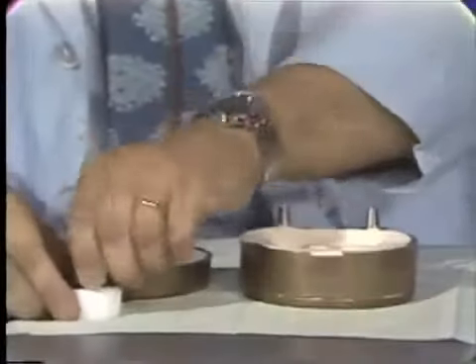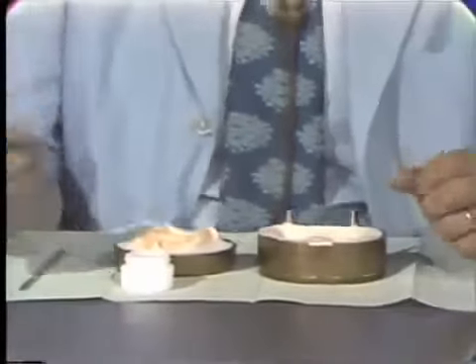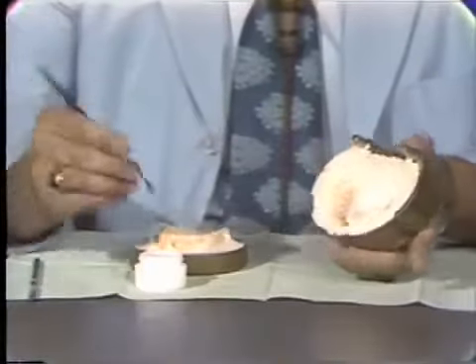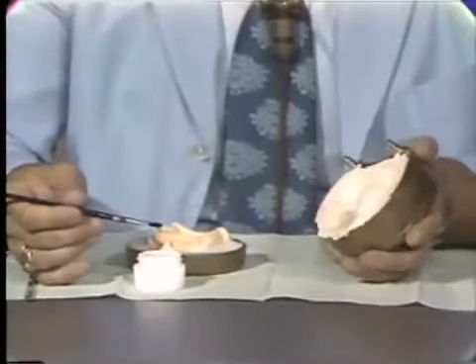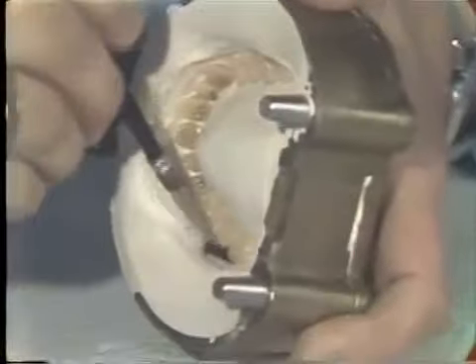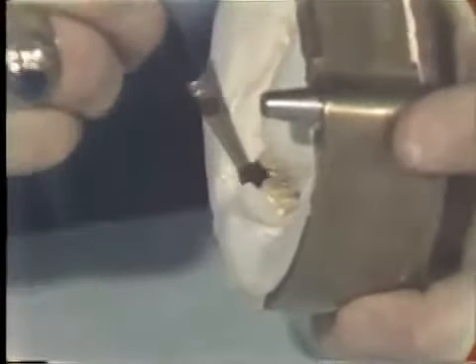We will proceed with placing a separating media over the stone surfaces of our flask mold. To do this, we'll be using a product called Alcote — A-L-C-O-T-E. It is an alginate material that is painted over the surfaces of the stone so that the resin will not adhere to the stone after it is processed. I'm going to proceed only with the maxillary denture at this time, and I'll show you what this looks like as we paint the material onto our stone. You try to not touch the teeth while painting this on, but merely flow the separating media around the teeth on the buccal flange of the denture.